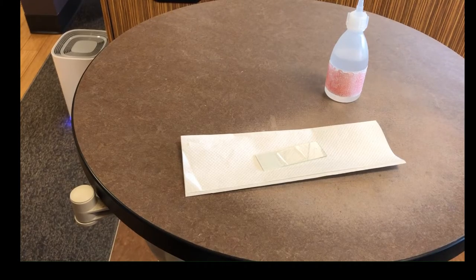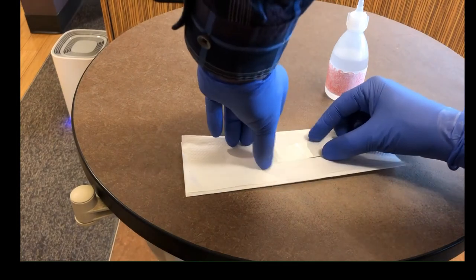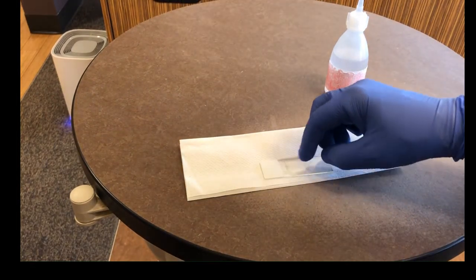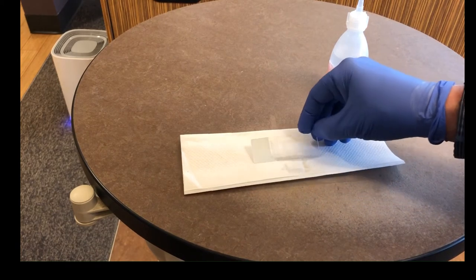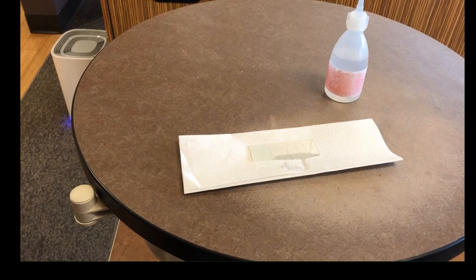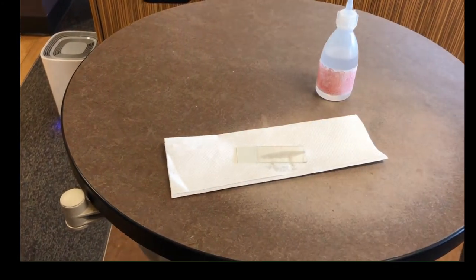Now you can take a two by two and press it down gently on the cover slip. This will flatten out the sample and also blot any excessive liquid beyond the borders of the cover slip. Here's an alternate way of blotting the slide. Place the slide on a folded paper towel. Once the cover slip has been placed, just flip it over, press it down, and that blots the excess liquid, flattens the slide, and gets it ready for applying sealer. At this point the slide is going to look like this and you'll be able to see the smudge of the plaque sample within the square of the cover slip.